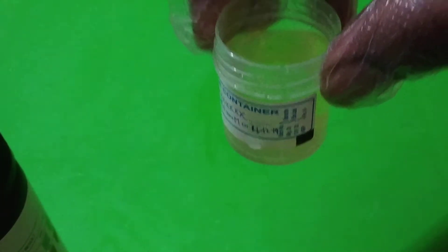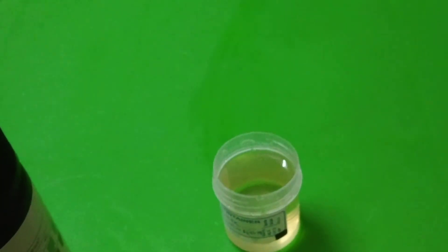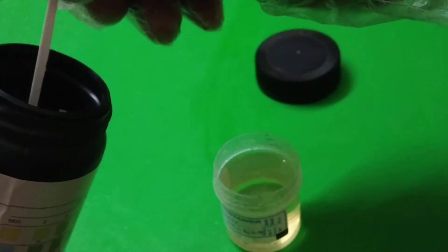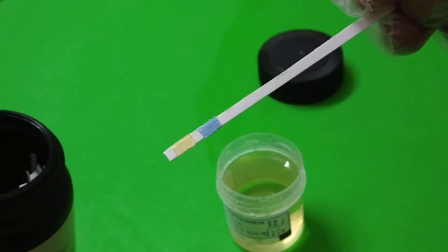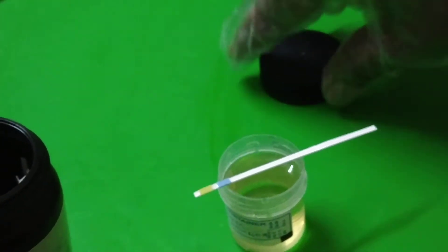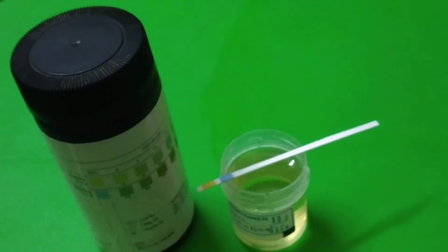Now we have the urine sample. Take one new urine stick — you can see the color is like this. Immediately dip it inside the urine, keep it there, close the lid of the bottle, and wait for one minute to check the color.